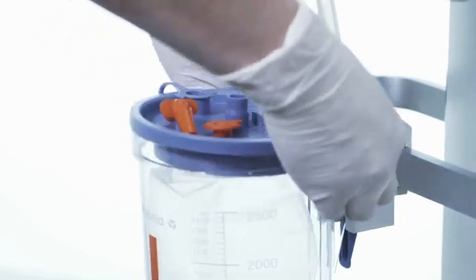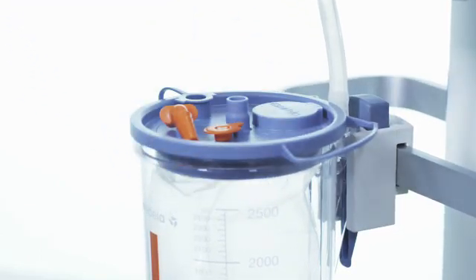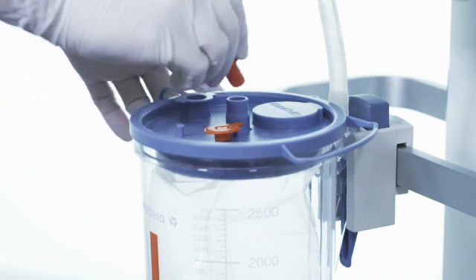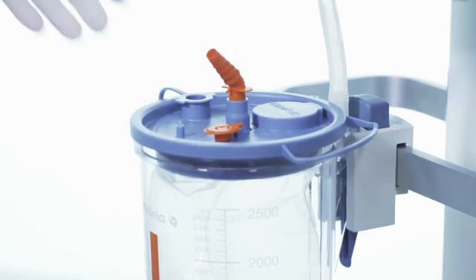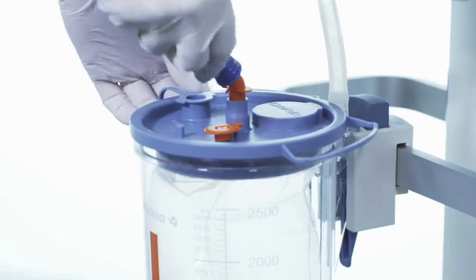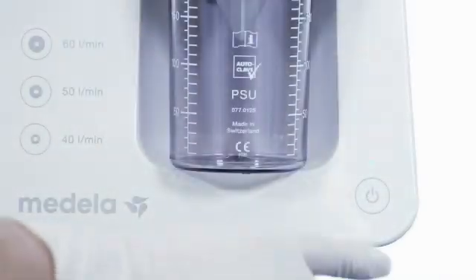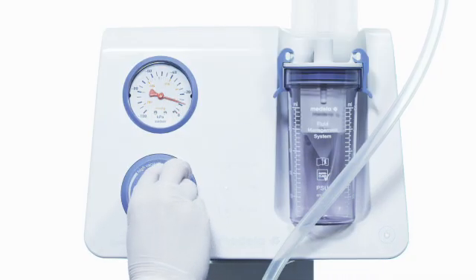Take hold of the liner and press down ensuring it's tight against the rim of the jar. Remove the angle piece and place it in the patient port. Now attach the patient tubing to the angle piece. Turn on the pump and set the level to the maximum value.